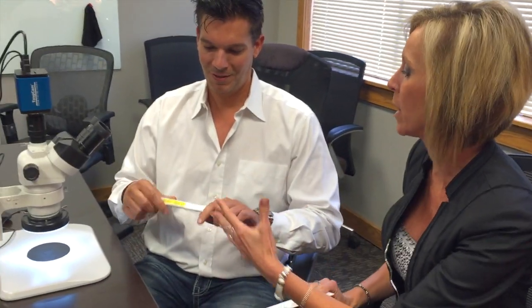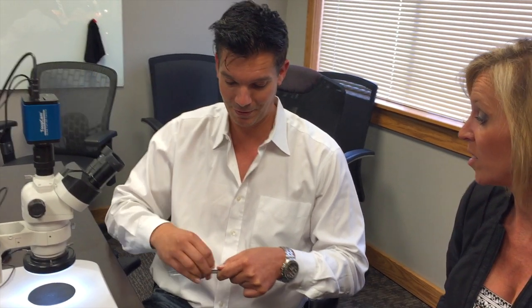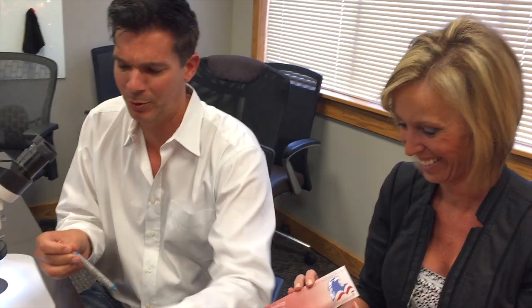There we are. I feel like something should pop out of the package. And forgive me, as a rookie person here, I don't open scalers very much. This is good. You didn't know you were gonna have this challenge. I didn't really realize — it's like Christmas in the summer. And this XP, also 1112, unopened. Obviously... you wanna open that one?